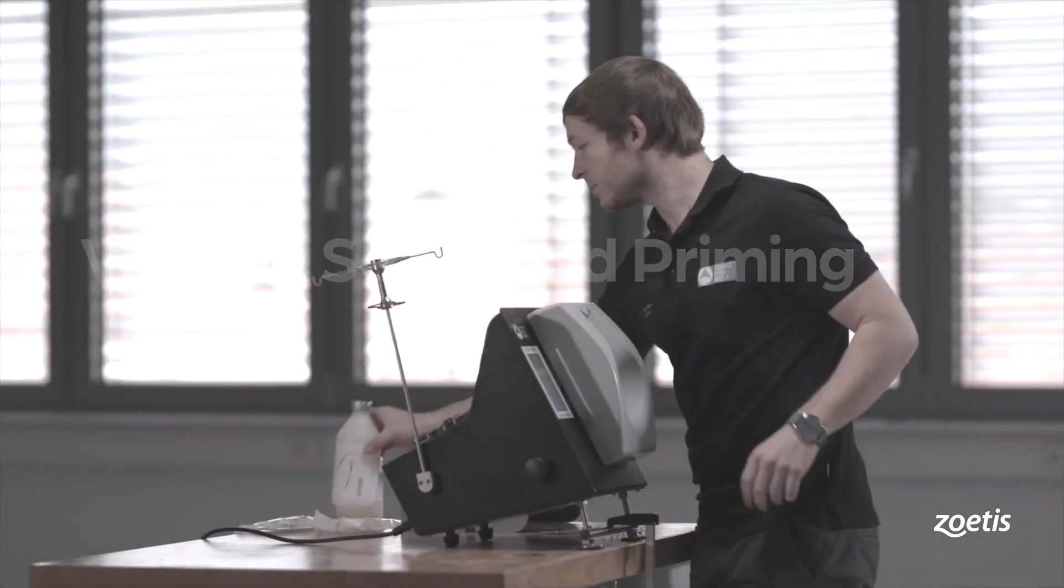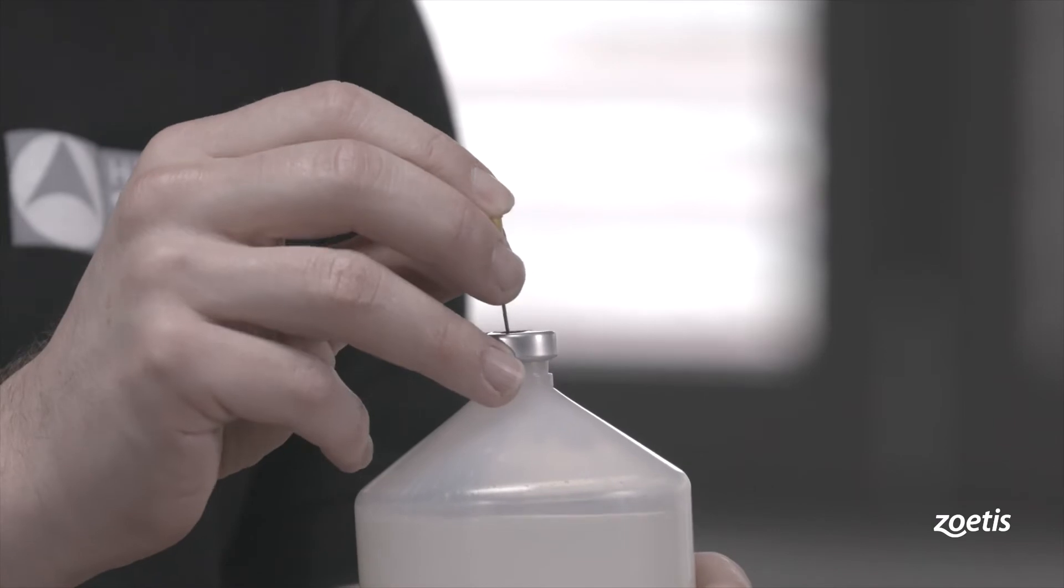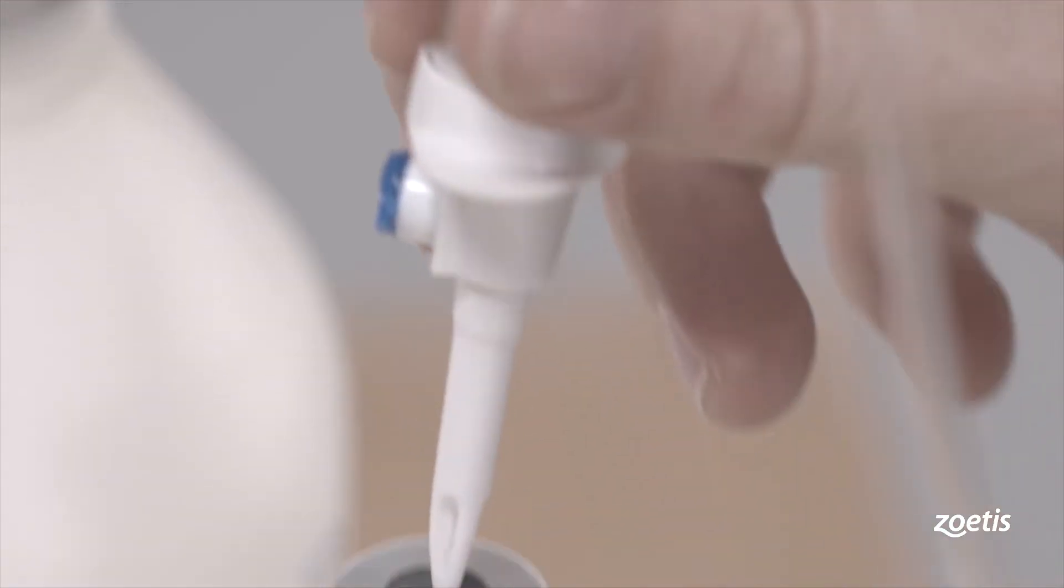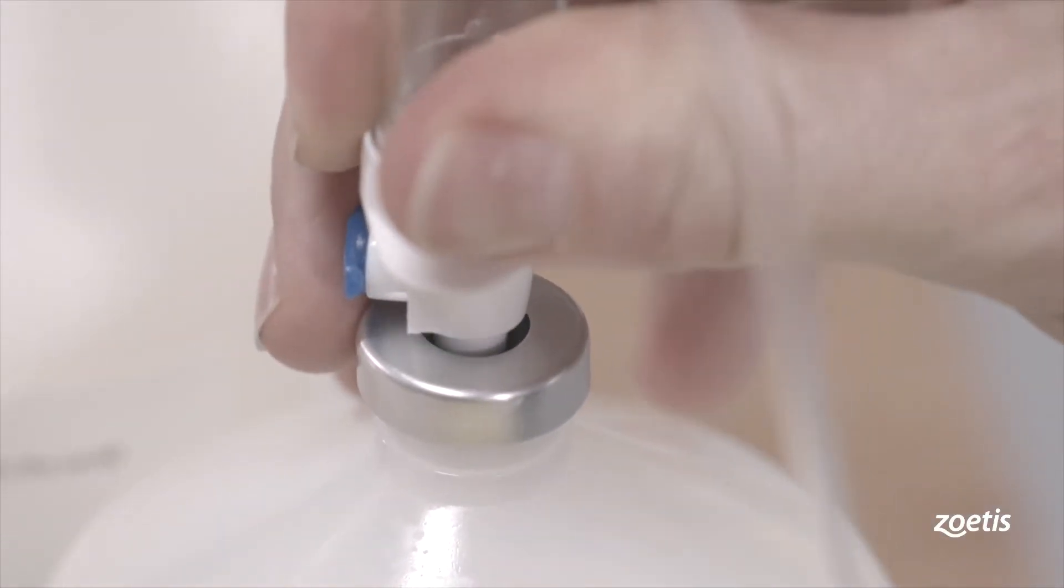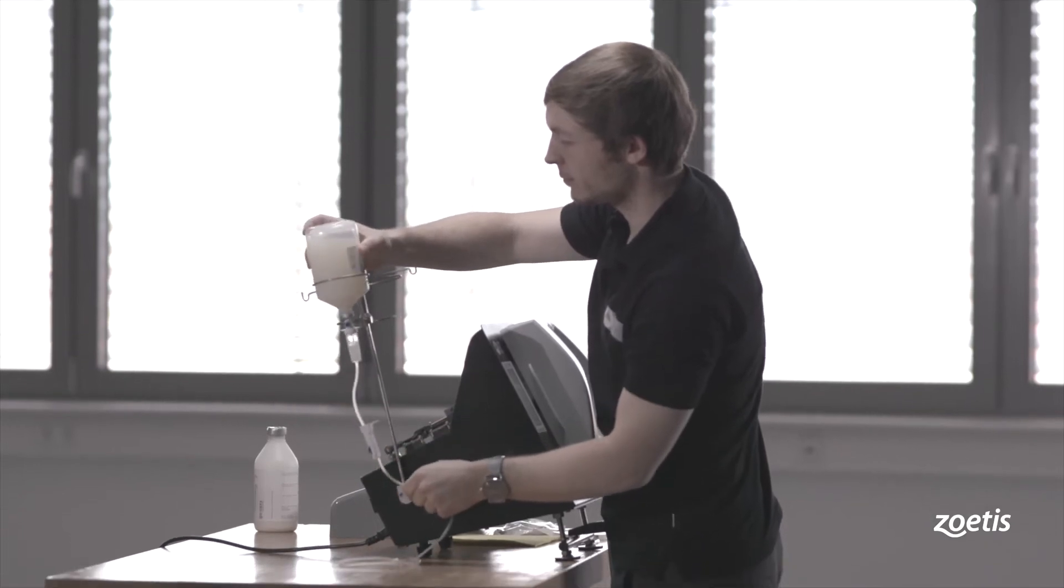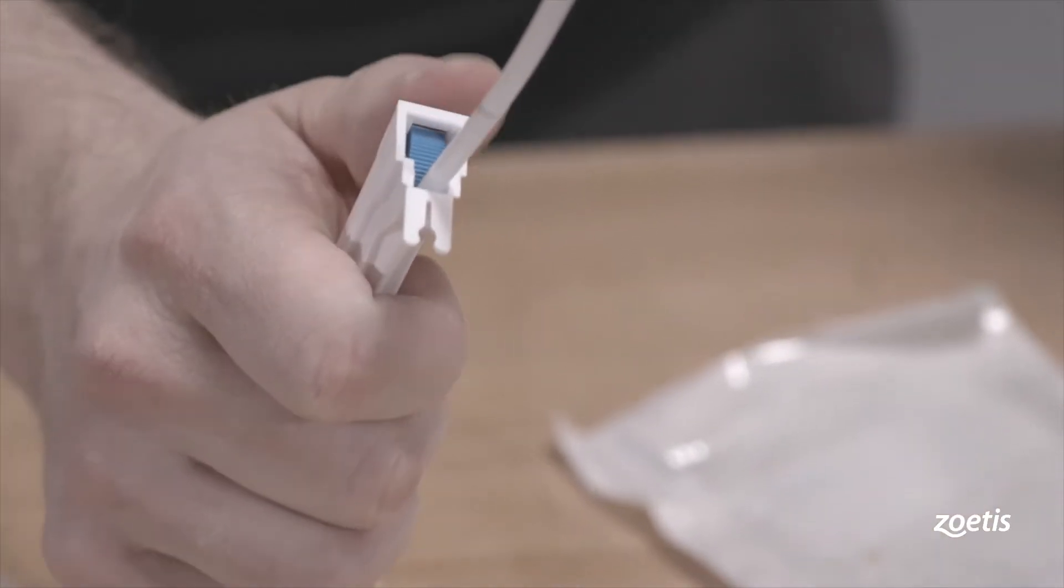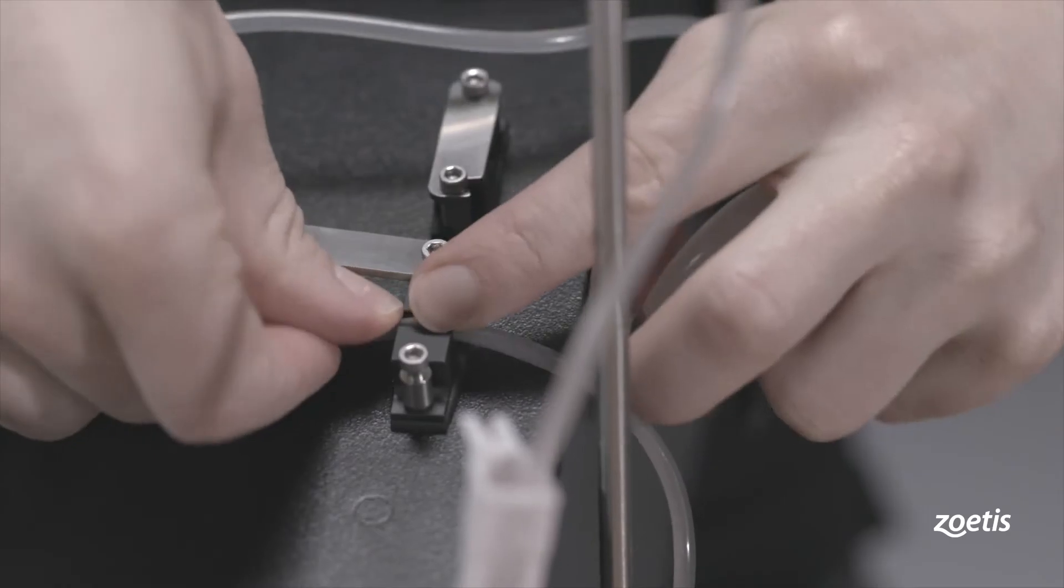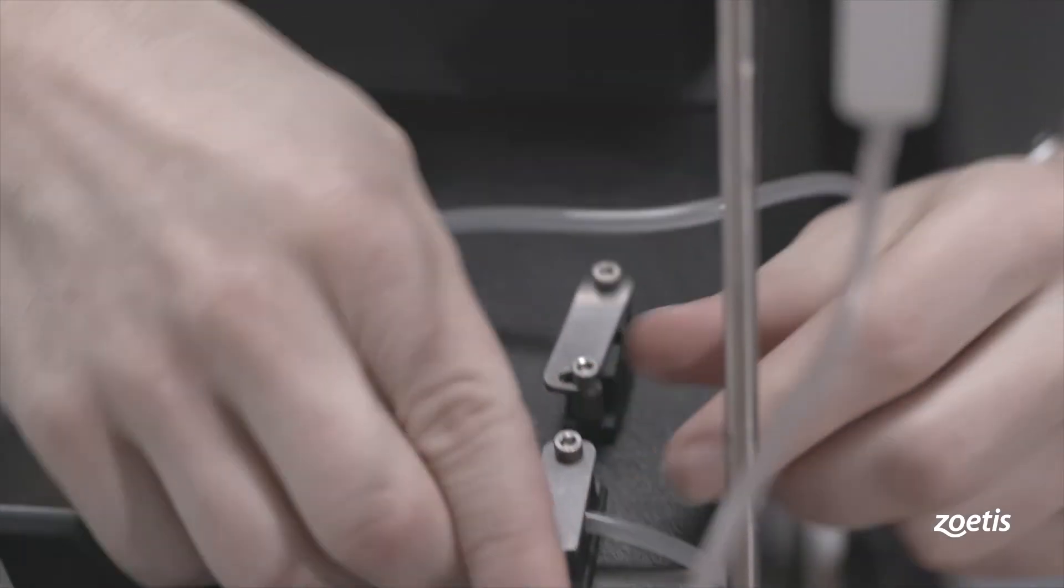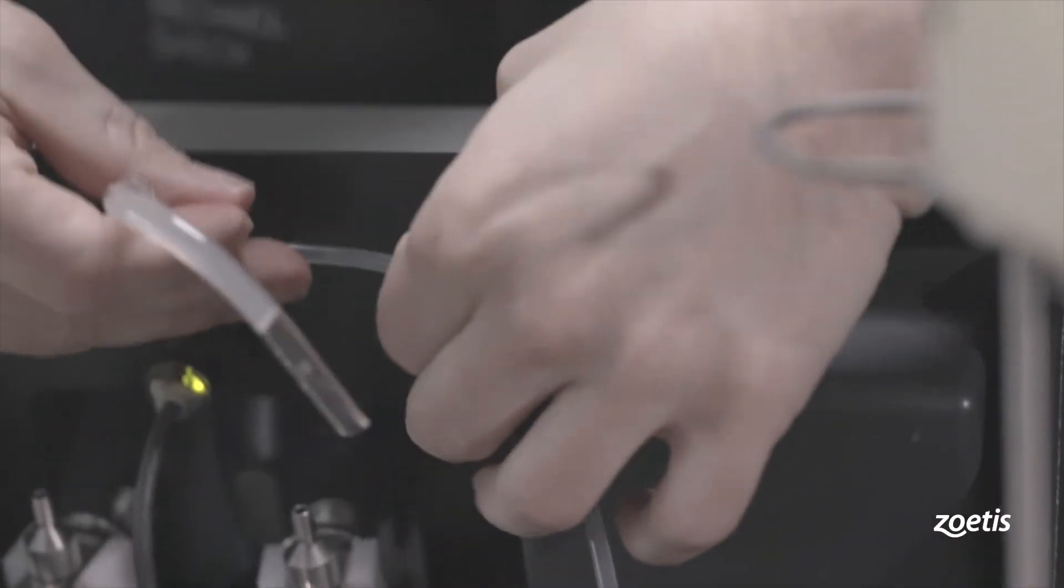Take a vaccine bottle and pierce it with a sterile needle. Connect the dripping chamber to the vaccine bottle and place the bottle in the vial holder. Open the flow control to ensure a free liquid flow. Guide the vaccine tubes through the tube guiding clip and the flow sensor and close the sliders.